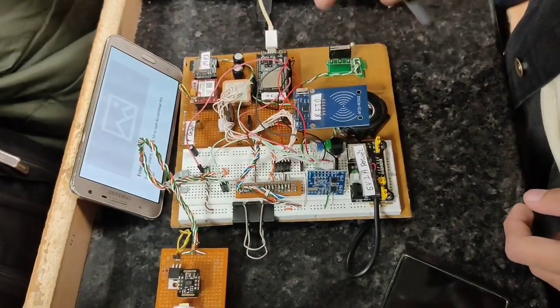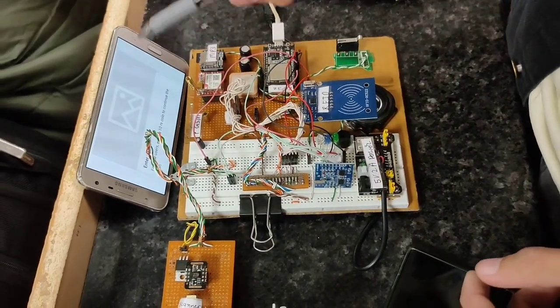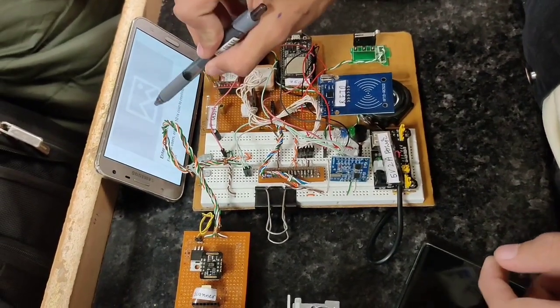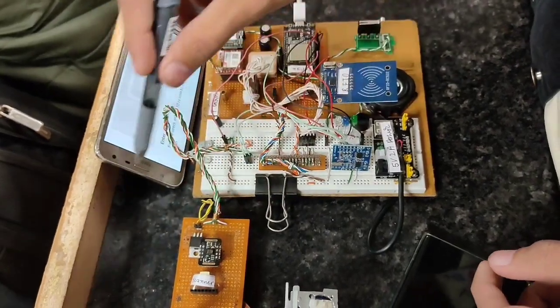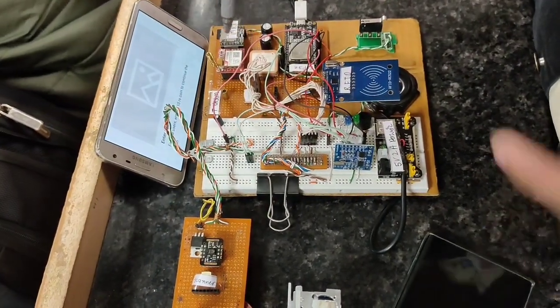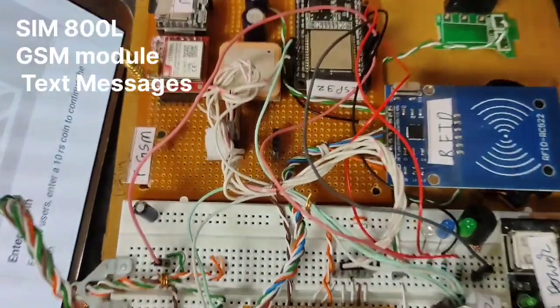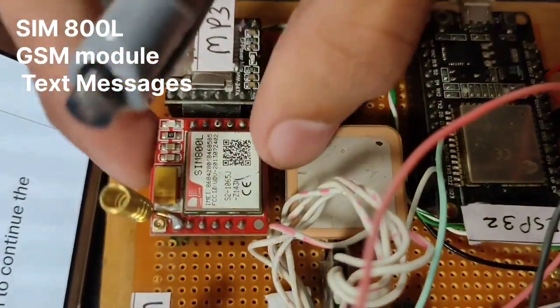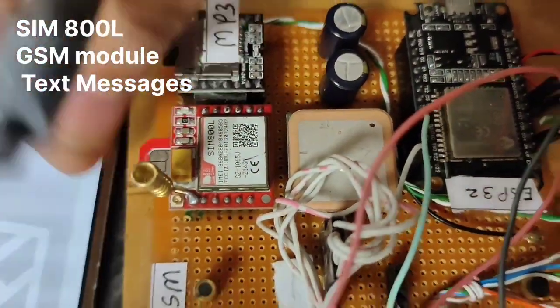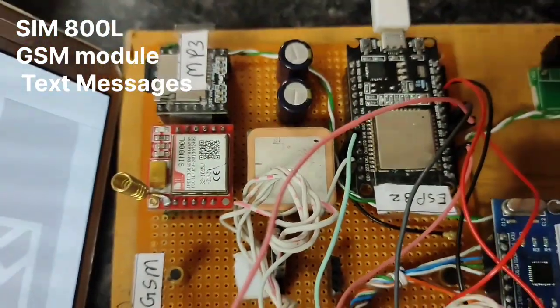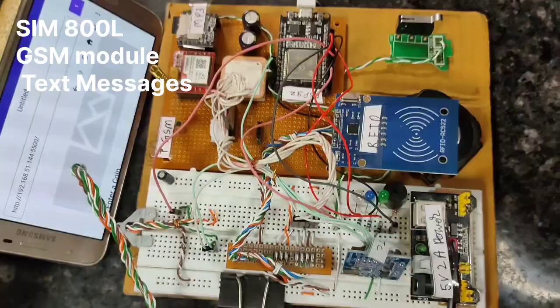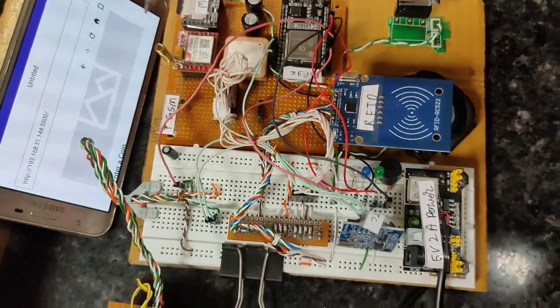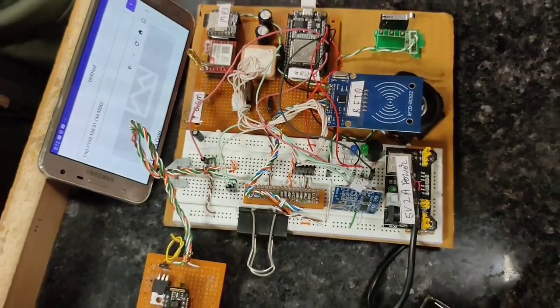The machine will tell him to enter his data from this display. He'll place his finger here. After calculation is done, it will send the data over to his mobile number. This is a SIM800L GSM module. As you can see, there's a SIM card inside. This module is capable of sending text messages.